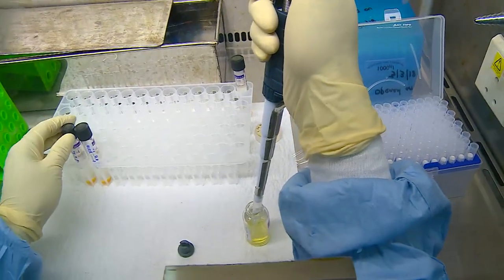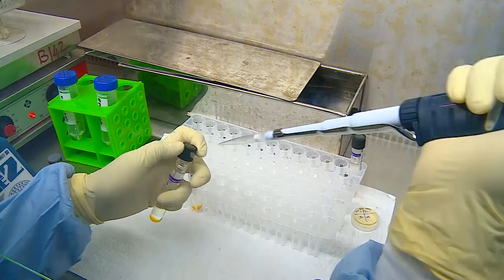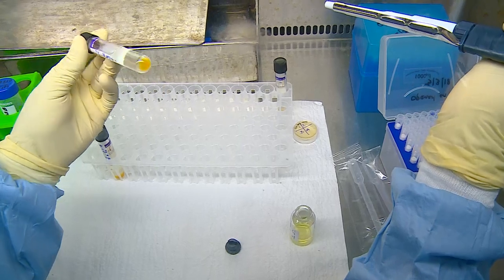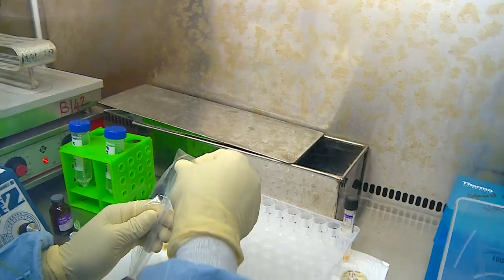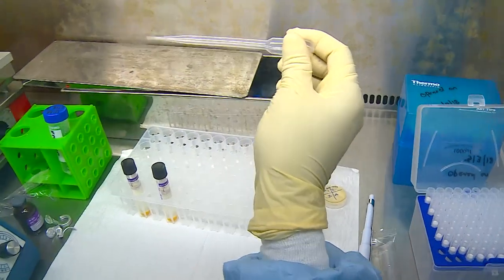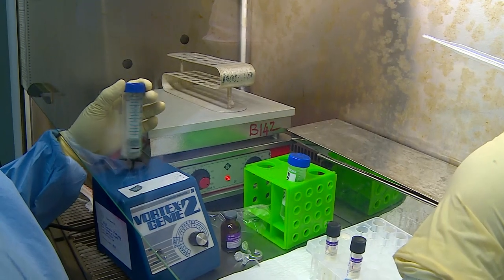Using biosafety precautions and an aerosol tip, 0.8 ml is taken and added to the MGIT tube. The tubes are now ready for inoculation. The decontaminated sputum deposit is mixed well by vortexing, and 0.5 ml of the deposit is to be added to the tubes.